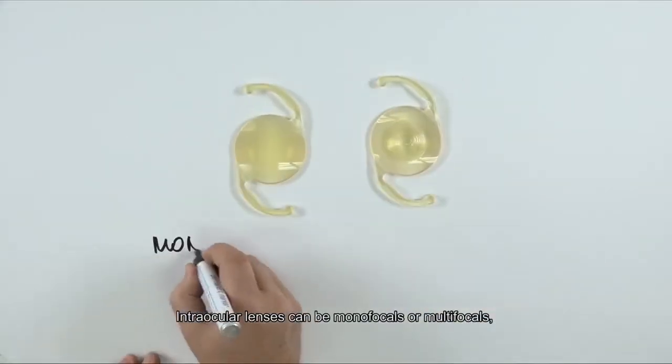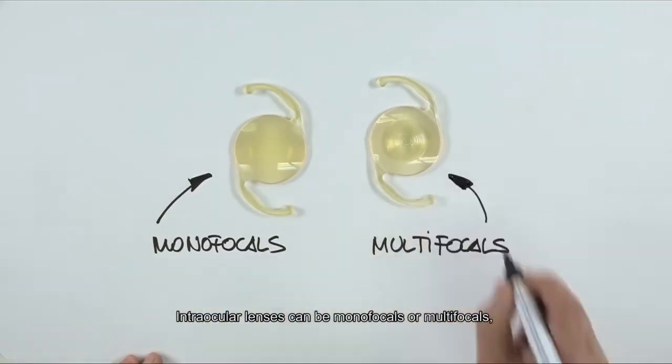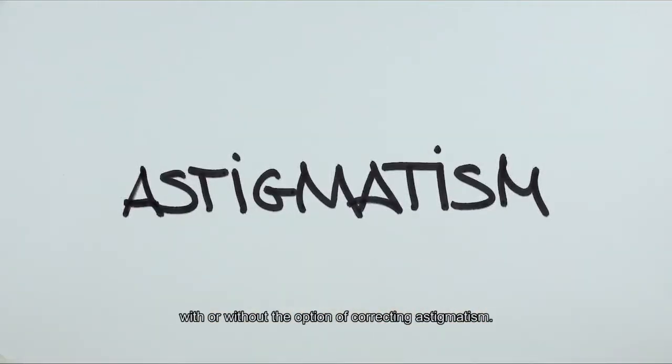Intraocular lenses can be monofocals or multifocals, with or without the option of correcting astigmatism.